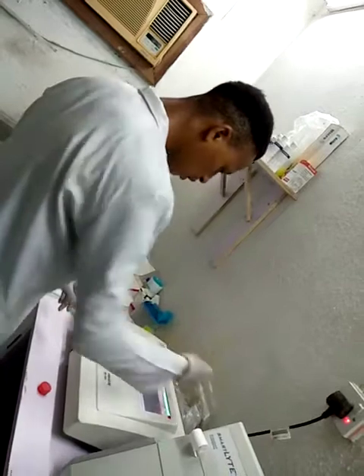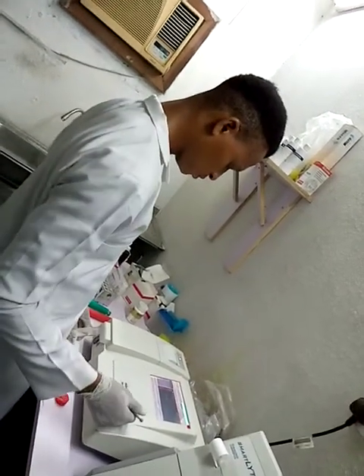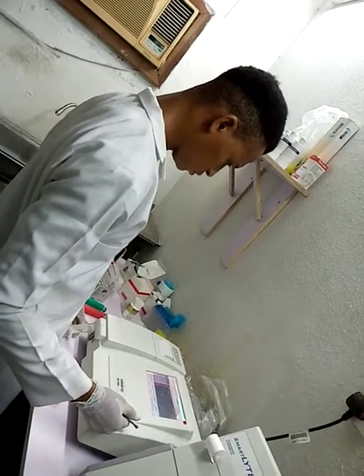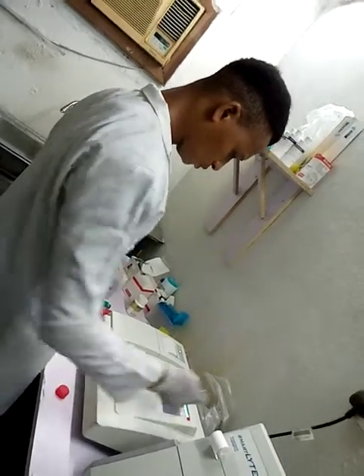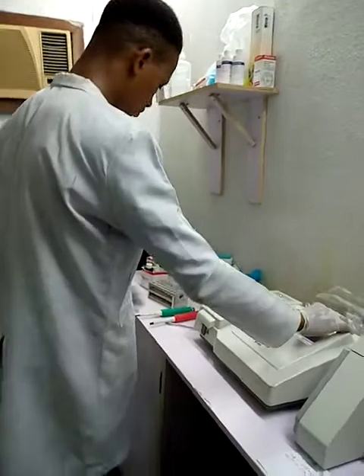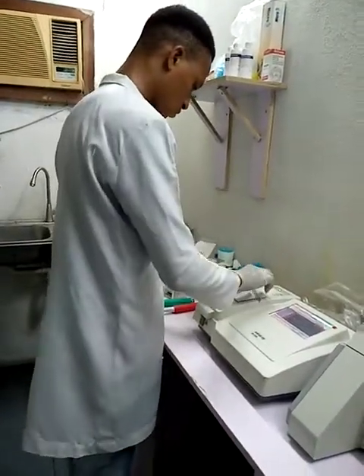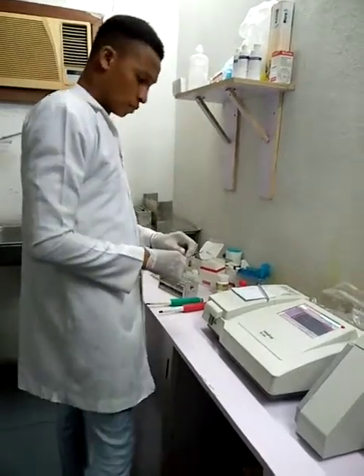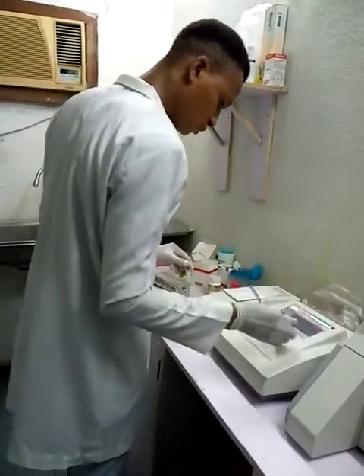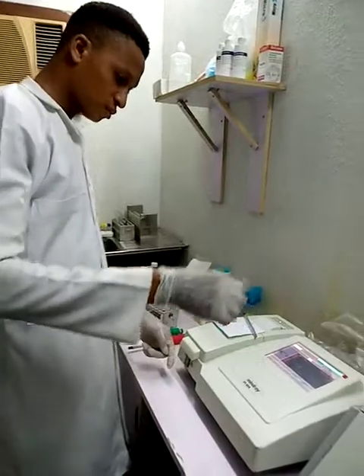I'll run my water blank. The water blank is 0. I'll go to the sample, click on sample, and run my real sample.